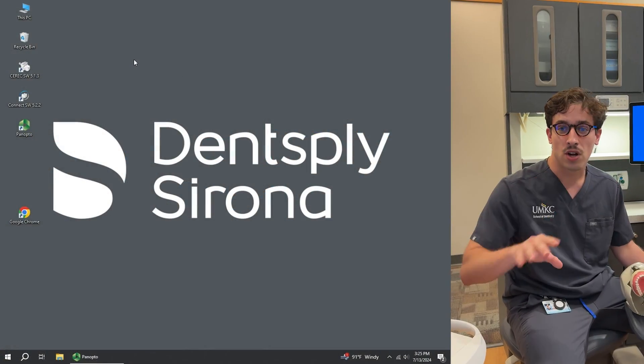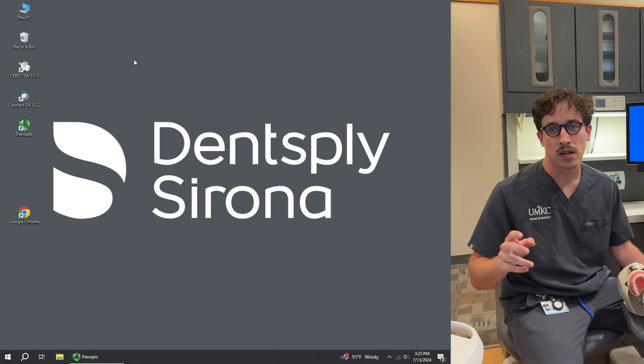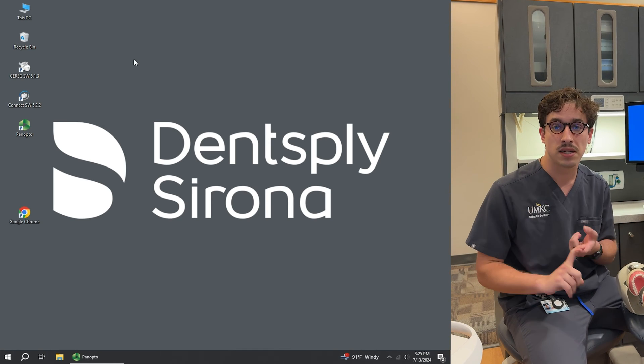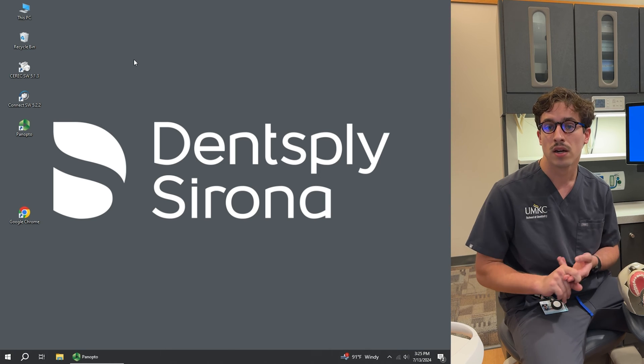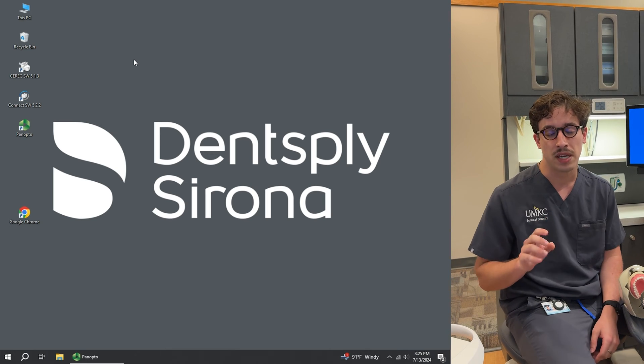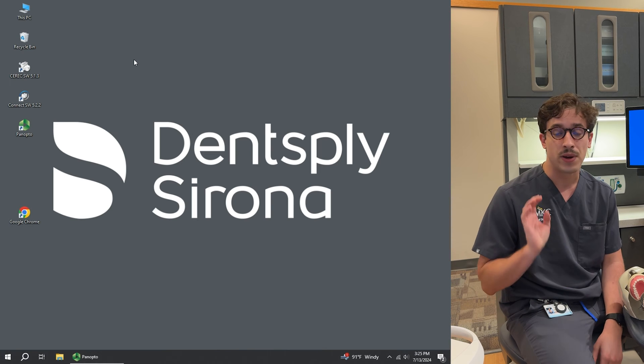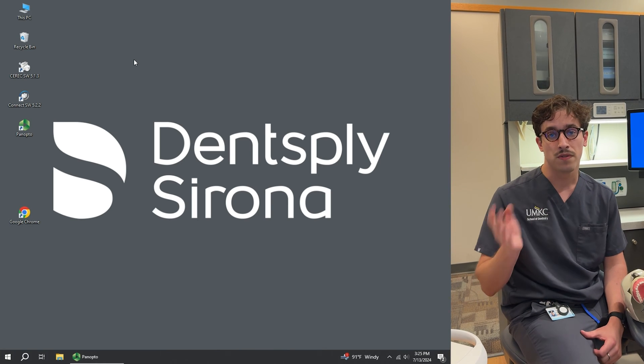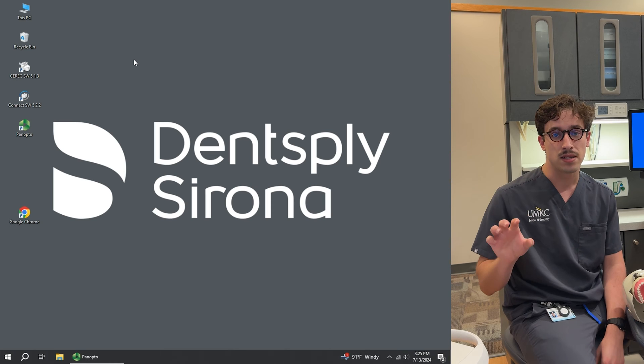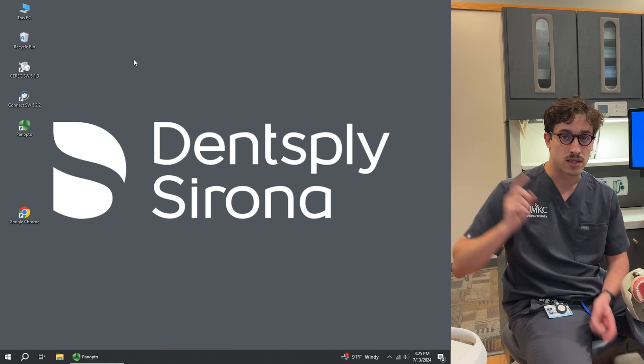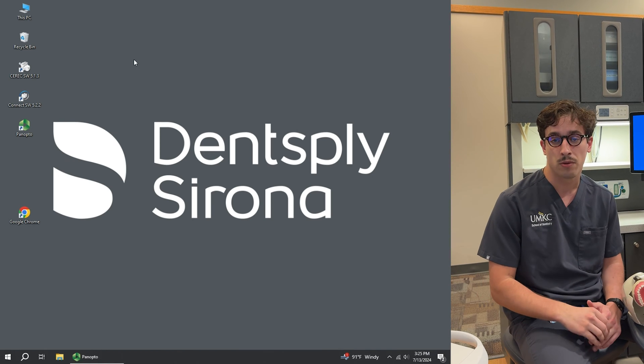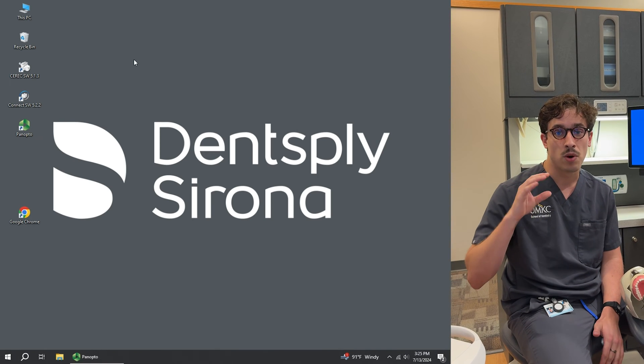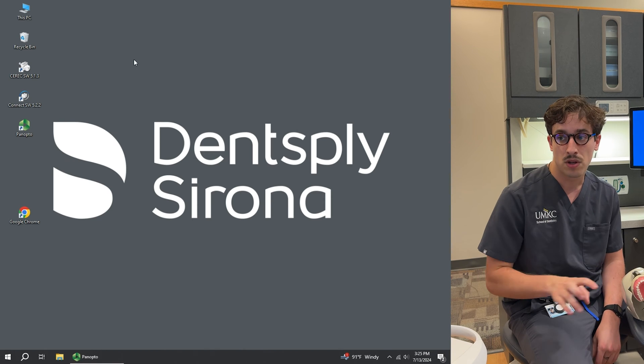All right, so to start off with, we've got two separate CEREC softwares that we can open up. We have CEREC Connect and then our CEREC milling software. So you have to make sure that you're selecting the correct software to begin with, otherwise it gets very difficult to switch the files between them. So just to review, CEREC Connect is going to be for cases that we scan here and we send off to the lab for the design and fabrication of our crown or bridge. And then our milling software is what we would use to be milling these in-house.